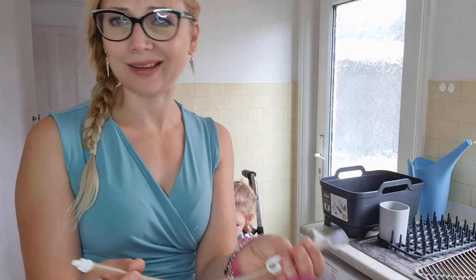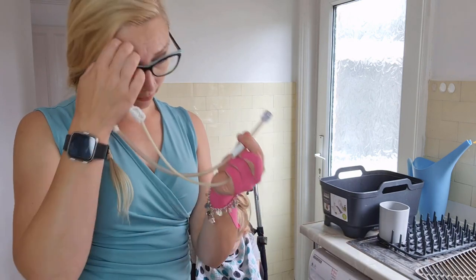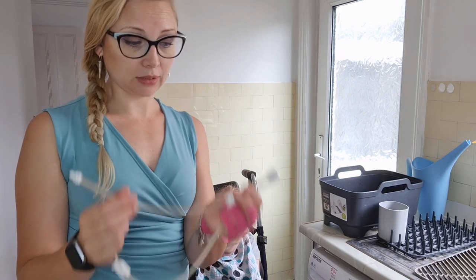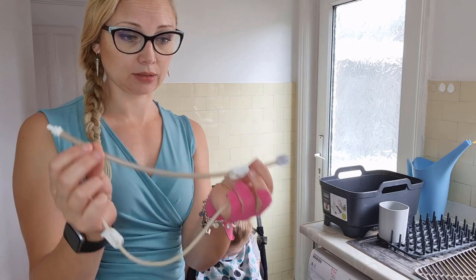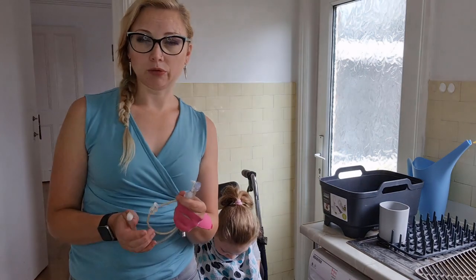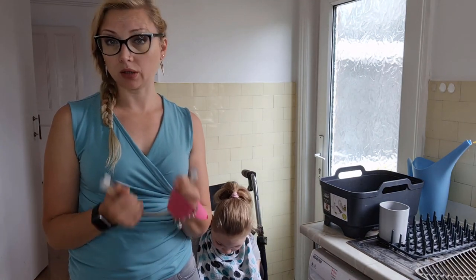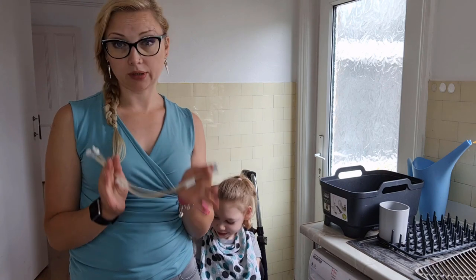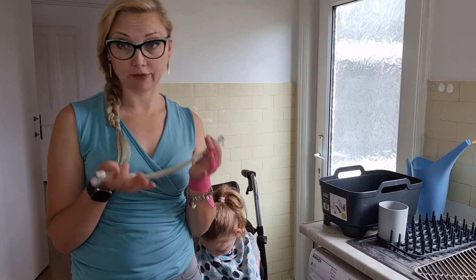I puree the food that I cook for myself and Alice, and then I push it through this tube as puree. I asked in a blended diet forum on Facebook how people could best clean these tubes and got a lot of interesting answers, so I thought I'd collect them all in one vlog and give you five tips for cleaning feeding tube extensions.